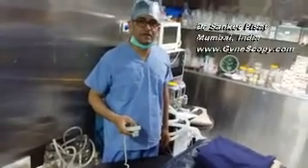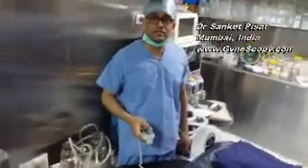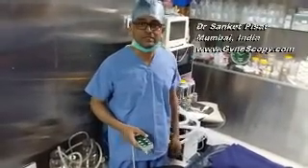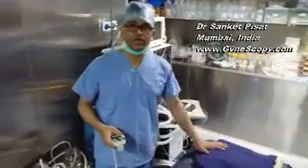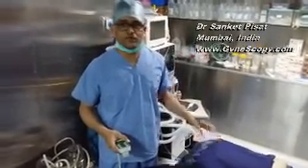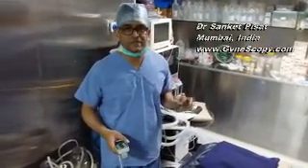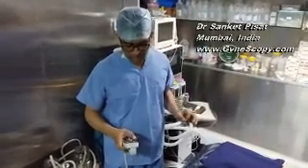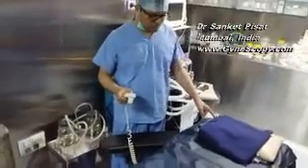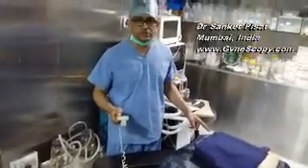The first thing of prime importance that you must see, especially if you are operating in an unknown setup or you are operating somewhere for the first time, is the OT table. Now, why is the OT table important? From a gynecology point of view, there are 3 or 4 very specific things that you require. The ability to turn the table to the head low and the head high position.